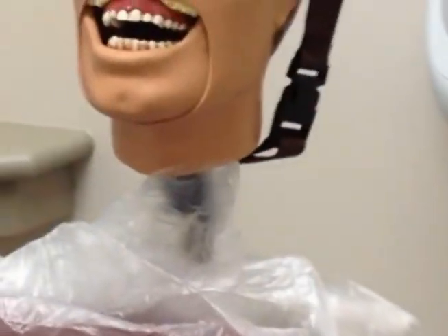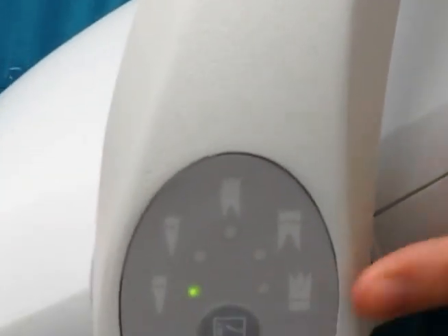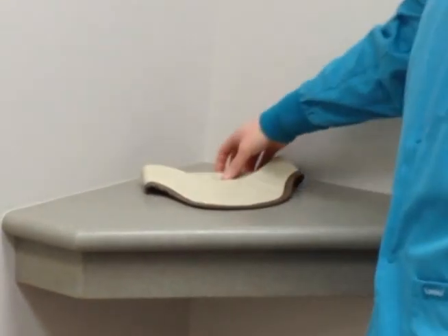After the exposure button is covered, you will bag the patient chairs. The bags can be found in the drawer below the countertop. While bagging the chair, make sure that the X-ray unit is turned on and the correct settings are selected for the radiographs you will be taking. Also, it is important to make sure there is a thyroid collar in your unit, because these must be worn by every patient while they are being exposed to X-rays.